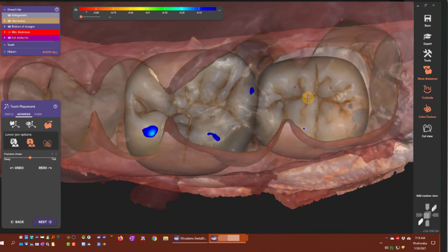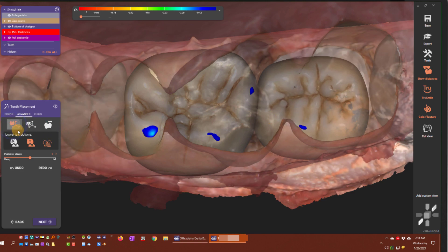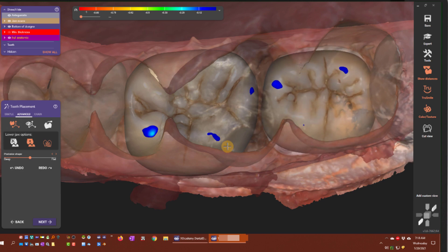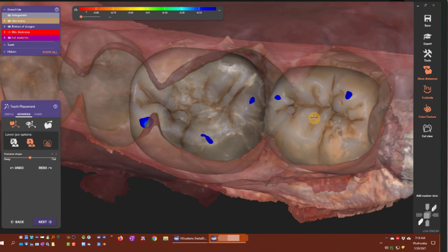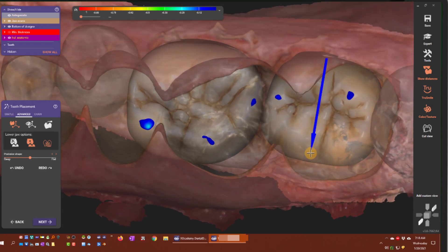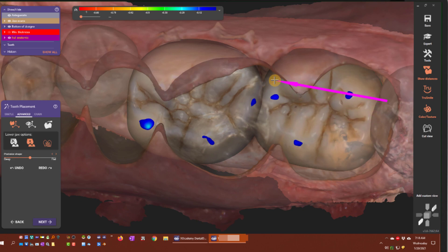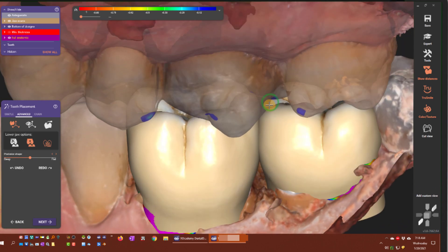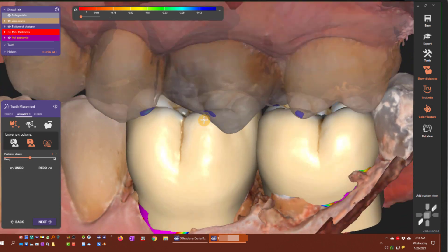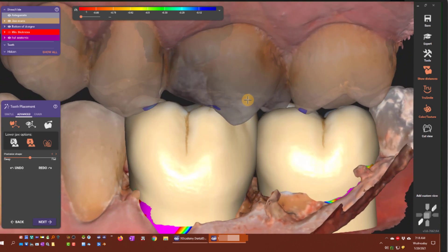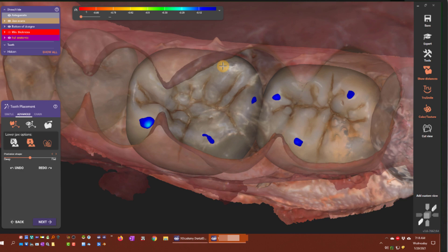Now I can do that with tooth 18 as well. Let's move the whole tooth — I can keep my scaling on and just bring it to the mesial a little bit. It's already adapted to the occlusion, and I'm just going to have to go in and change that proximal, but the shape is excellent. I don't have to do much in the next step.